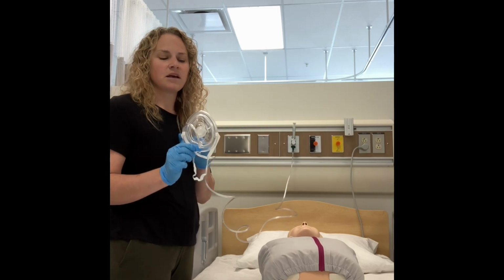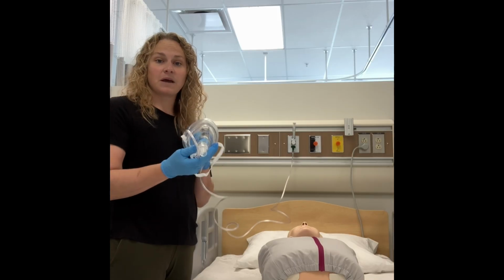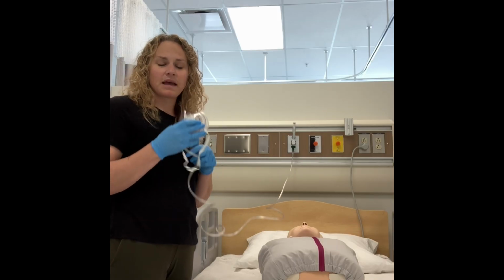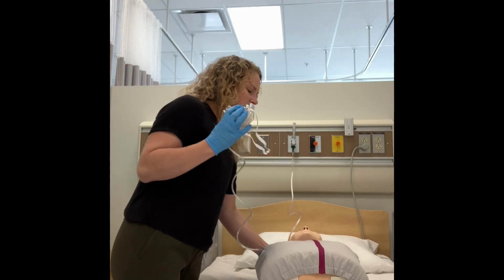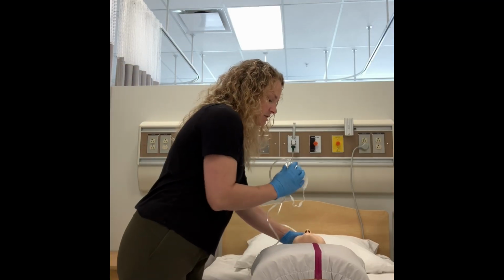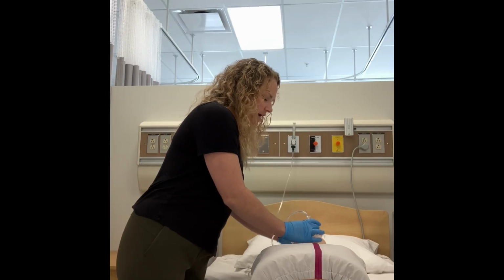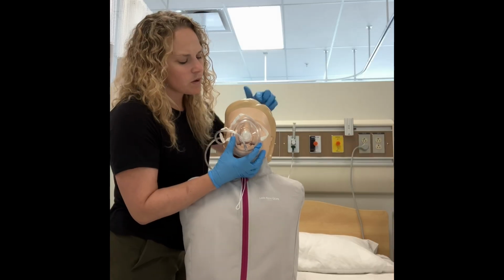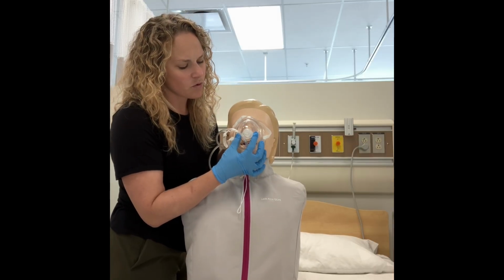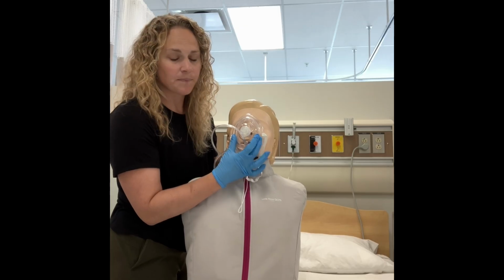You'll recognize this from one of the options that we have when that patient is breathing independently, in which case they can wear it like this and access some oxygen. This can also be used to deliver ventilations or respirations by placing it over top of the casualty's face. And I'll just lift up the mannequin here so you can see it. We want this small piece to be over the nose and the thicker piece to be over the chin here.